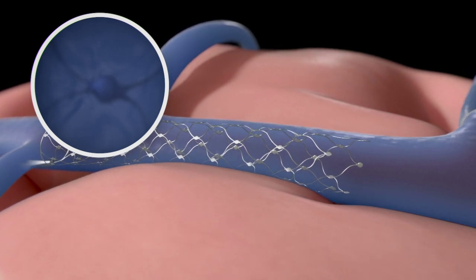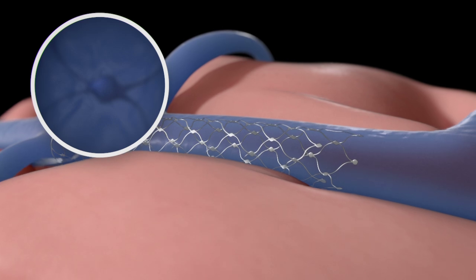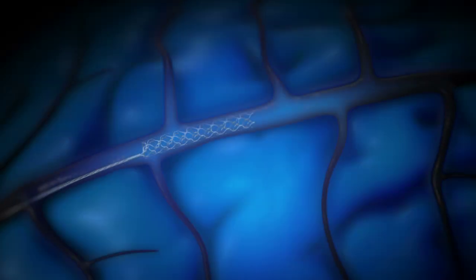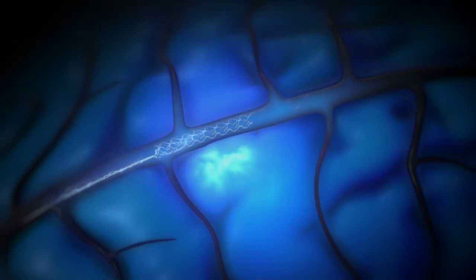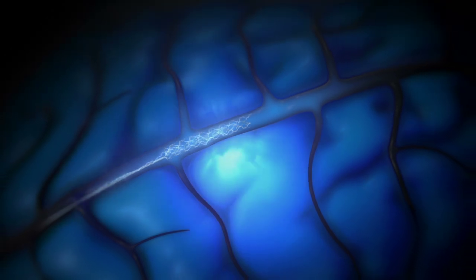The sensors are placed immediately adjacent to the control center in the brain, known as the motor cortex. The patient may be paralyzed, but their motor control center can still be activated simply by thinking.